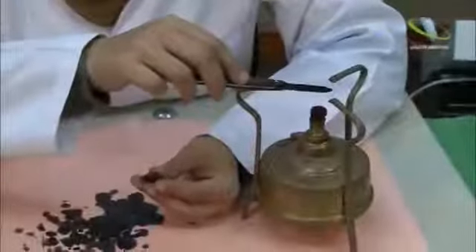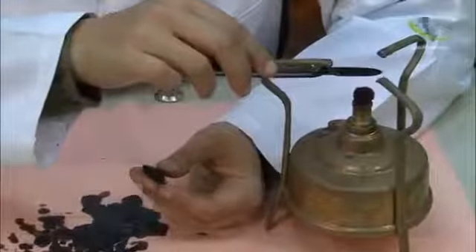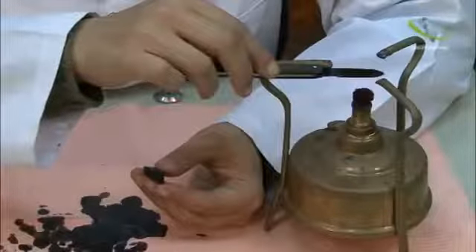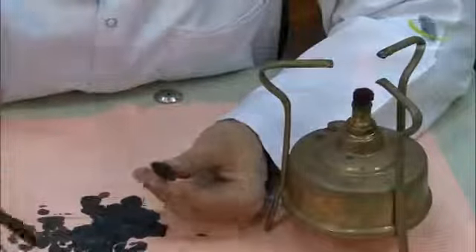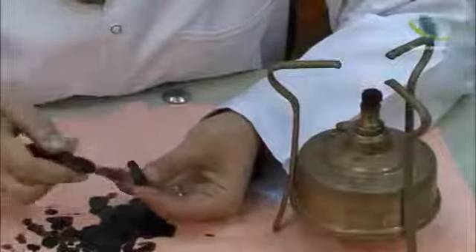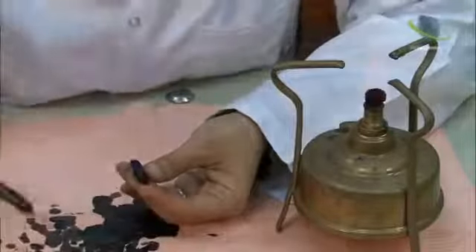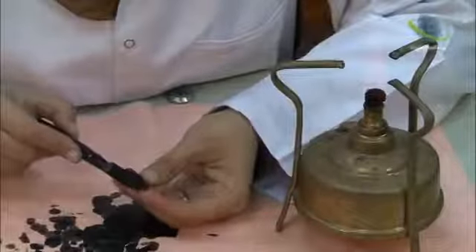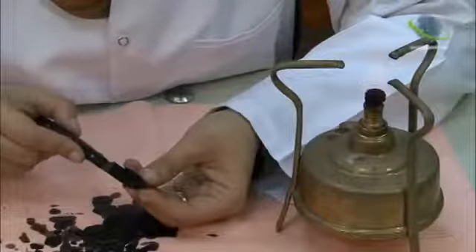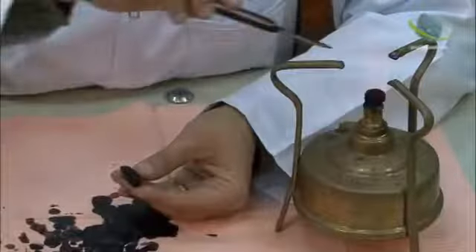Now we will make the lingual convergence, because the lingual aspect is always smaller than the labial aspect. The mesial aspect, we will divide it into two equal halves. With a knife, we will make an inclination of the lingual half toward the floor.